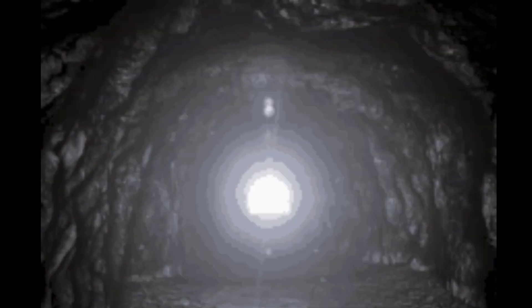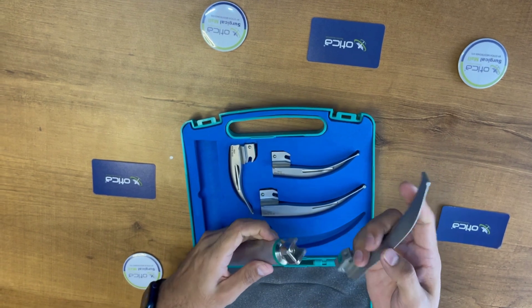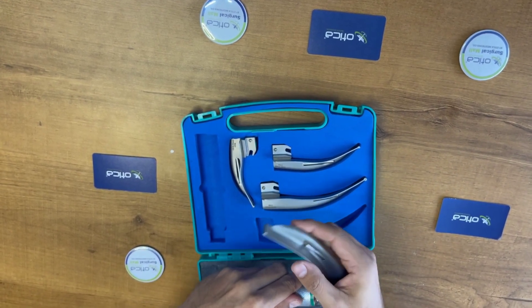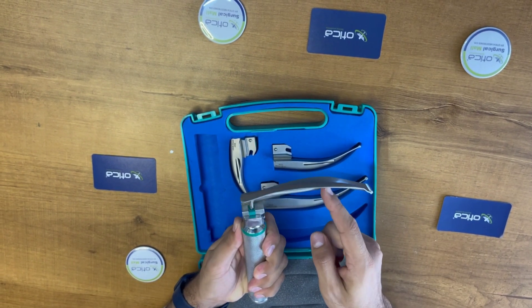It's like a light in a dark tunnel. In some advanced laryngoscopes, the handle has a halogen bulb, which works with optical fibers in the blade to give an even better and brighter light — like having a tiny flashlight that shows everything clearly.